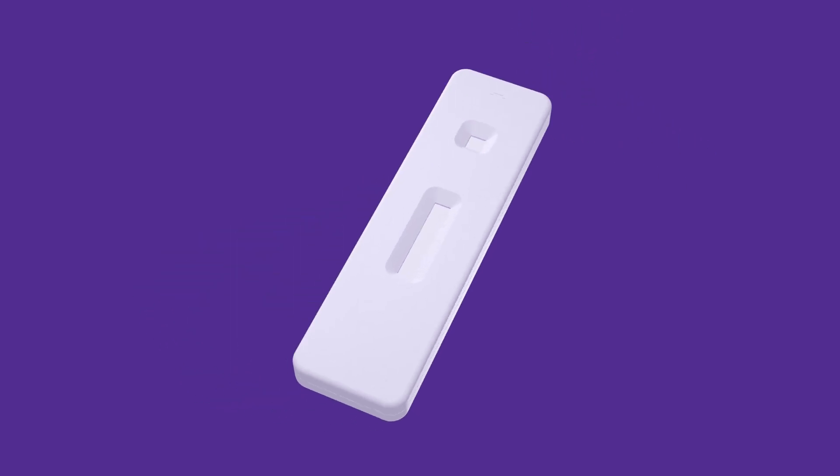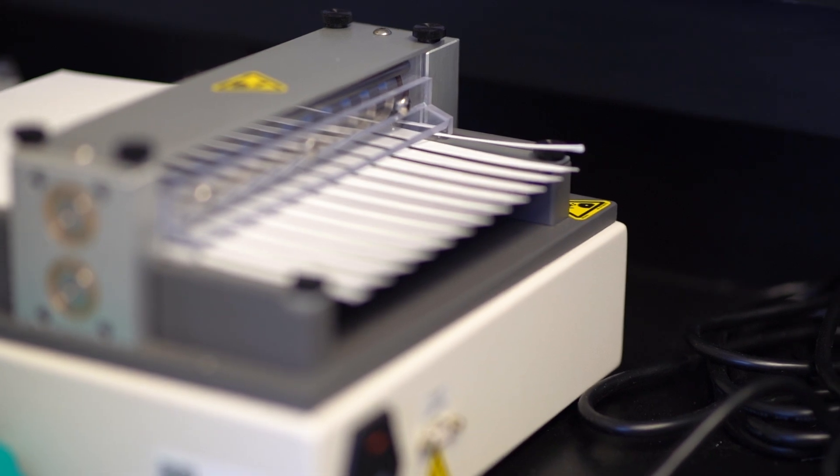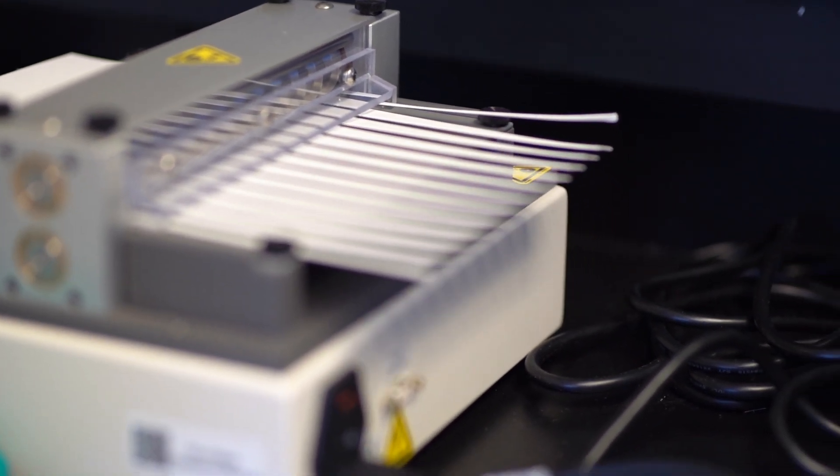Post-pandemic, most people are familiar with lateral flow test devices. What you may not know is just how many products can go into making one of these tests.